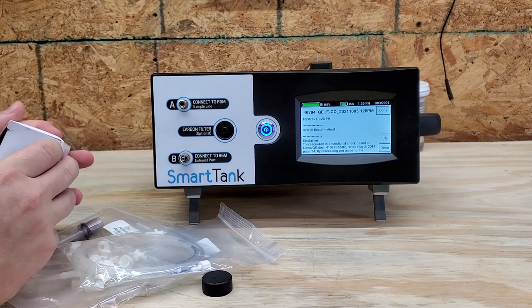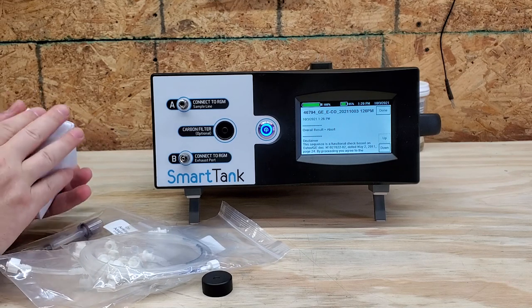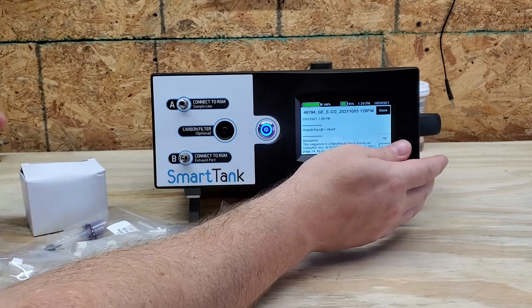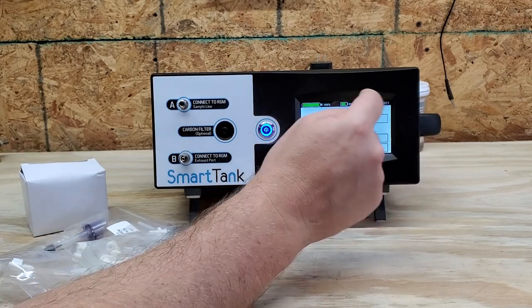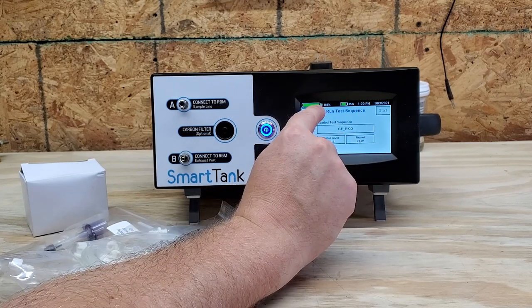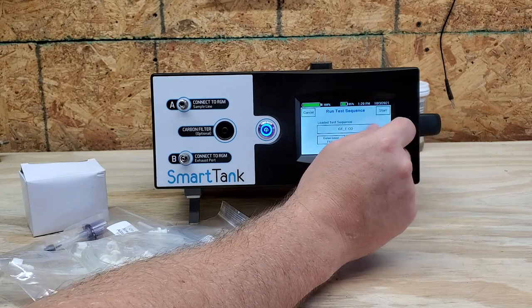This is probably your power adapter. Right now it's completely run off batteries. I'm at 85% battery and you can tell that my cal gas is at 100%, and the date and time — it's got all that.